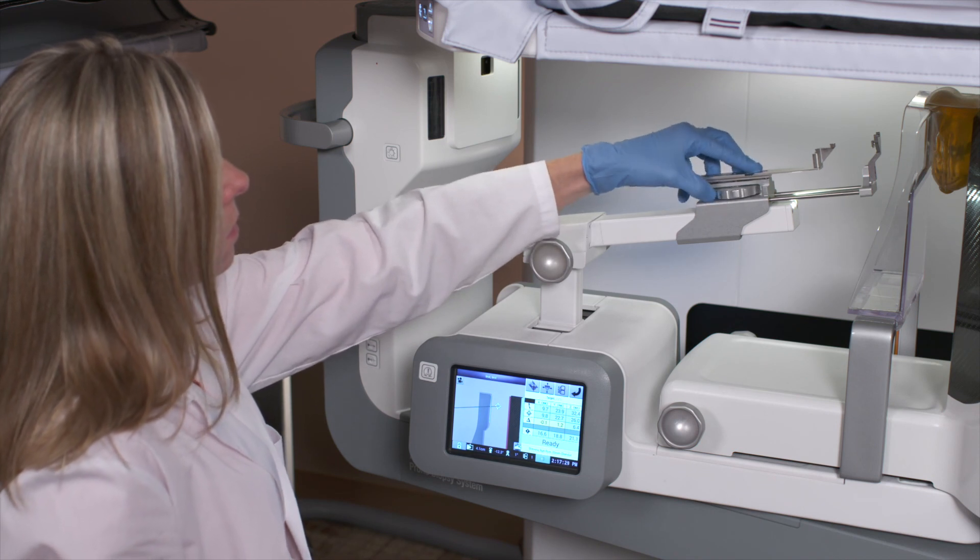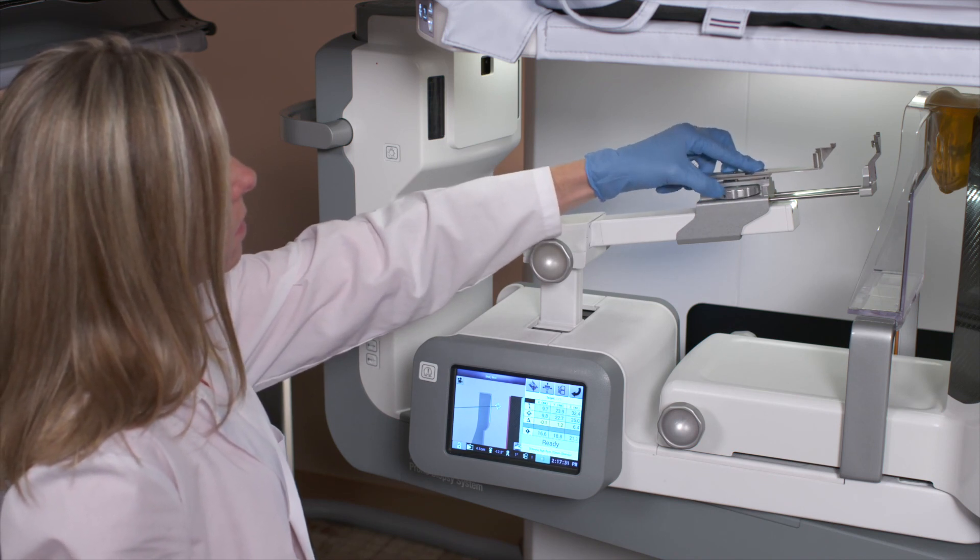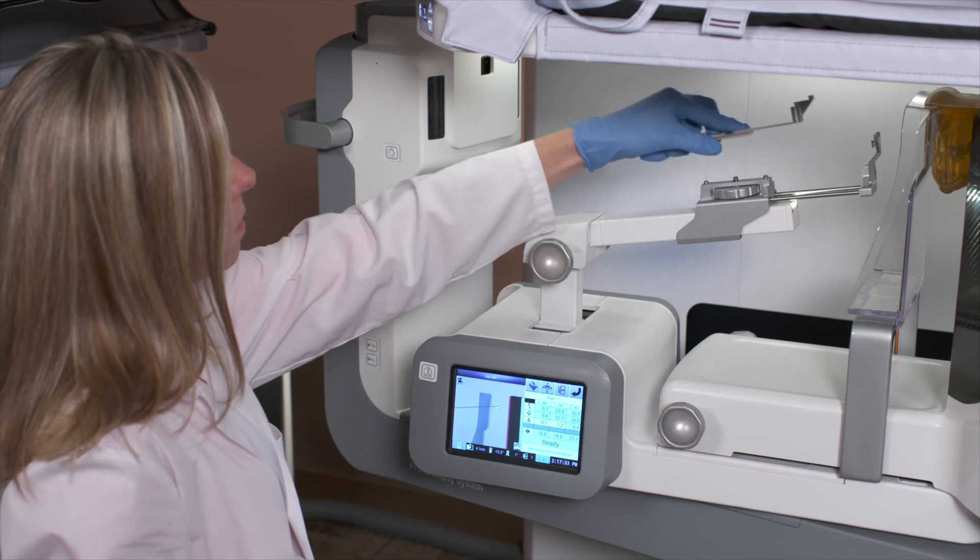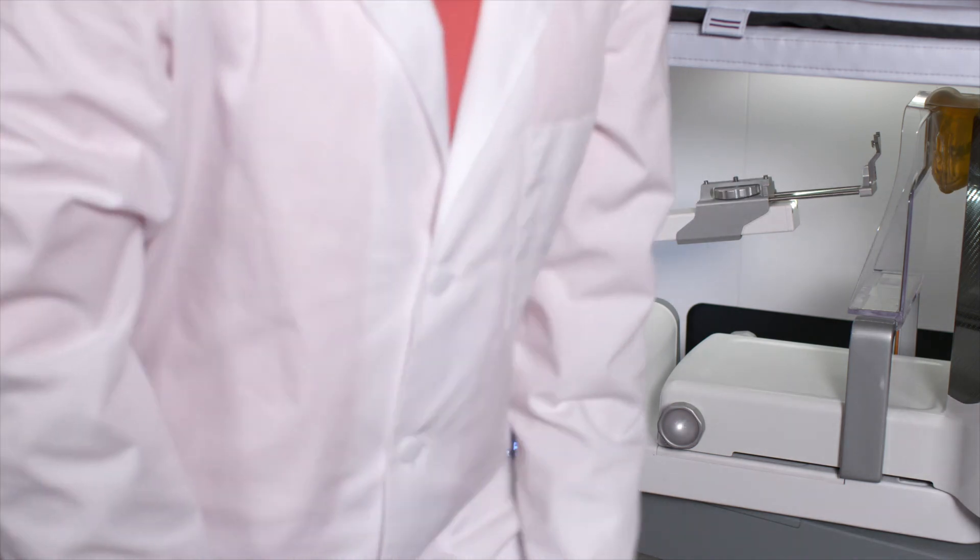The technologist will also remove the Brevera needle adapter and disinfect following proper cleaning instructions.